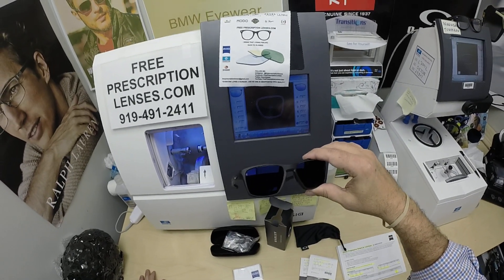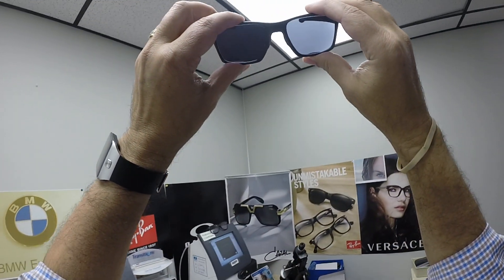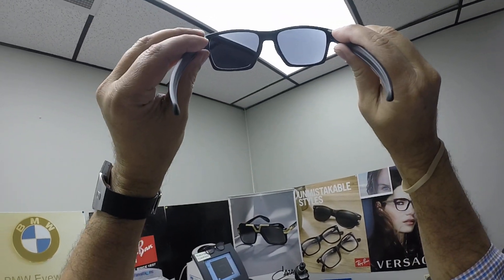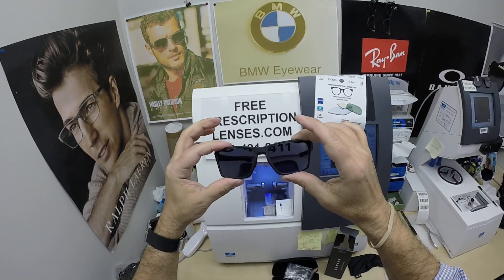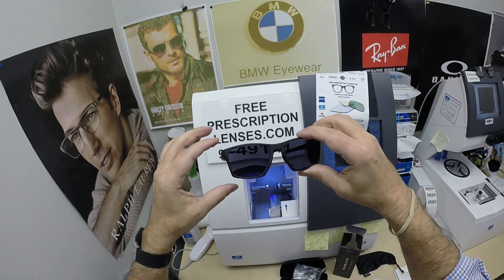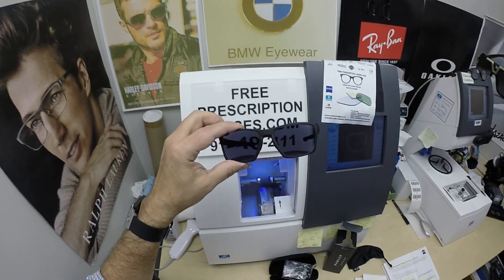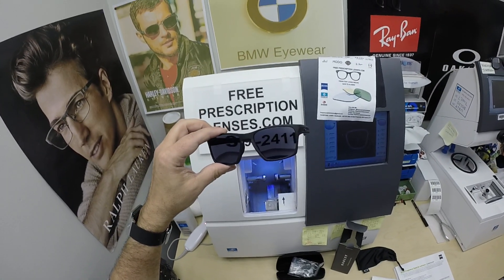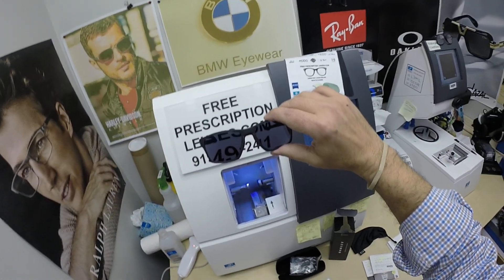The other thing about photochromic lenses — they're temperature sensitive, meaning they will get darker when it's 85 degrees and below than they will when it's 95 degrees and above. But I remind everyone: when it's 100 degrees outside, you're miserable, they're miserable, nobody or nothing works 100% when it's 100 degrees outside. We all work much better when it cools off. The Zeiss photo fusion extra gray are designed for extra active people who spend extra amounts of time outside in hotter weather.